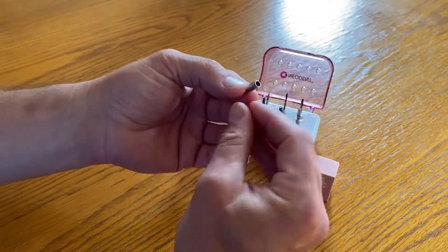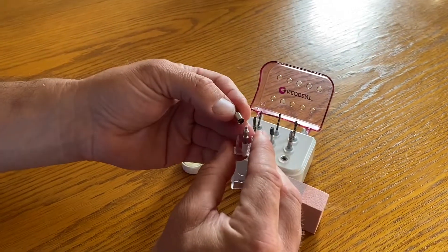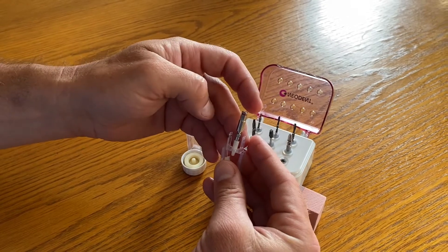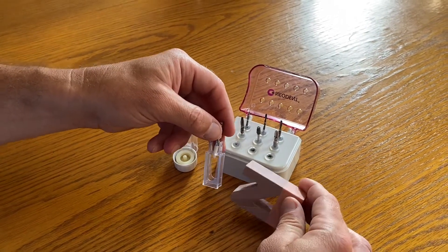The last thing is that we have this little adapter for the driver and it fits over top of the hex. And we either wrench it or there's a second piece to put it on your handpiece. Then you got a block to demonstrate how to place that.